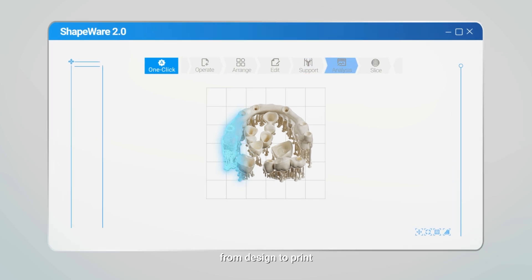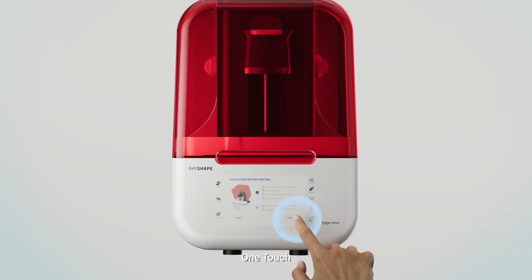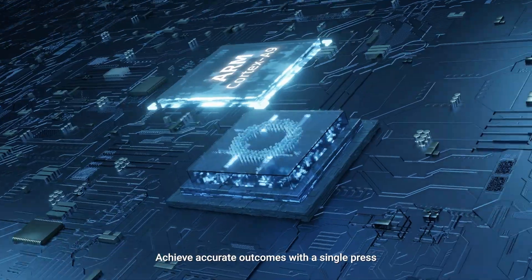One touch, from design to print, fully automated. One touch, achieve accurate outcomes with a single press.